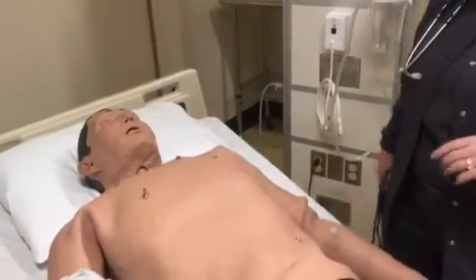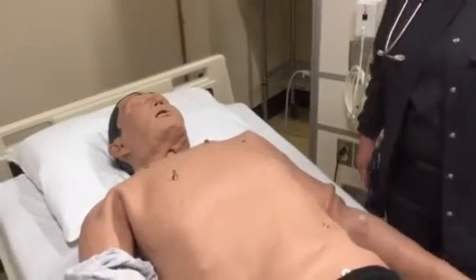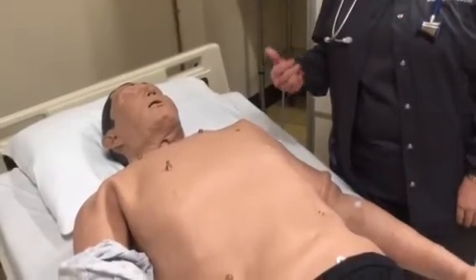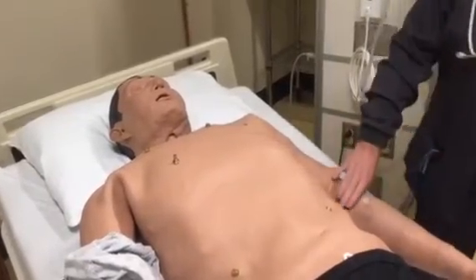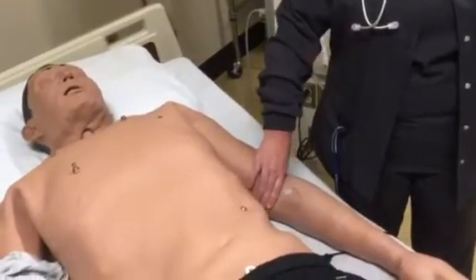It records everything that you touch and palpate for your pulses on the workstation in the control room. So it allows your faculty to know if you really did feel that pulse. All of the pulses are bilateral, so we will have our brachial pulse, which is just above the bend of the arm.